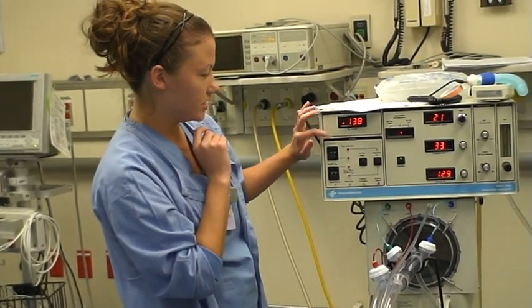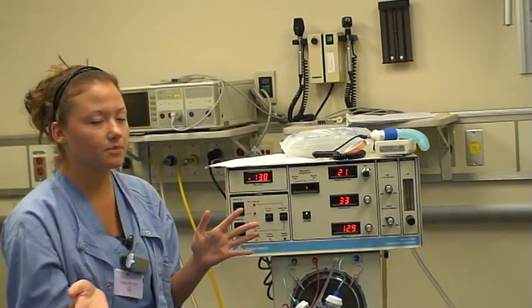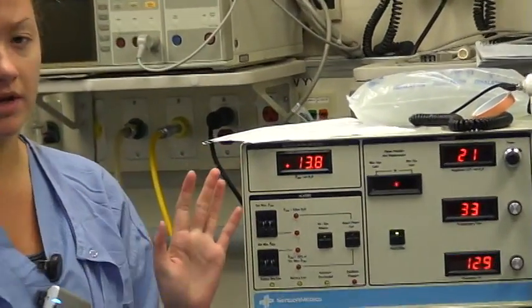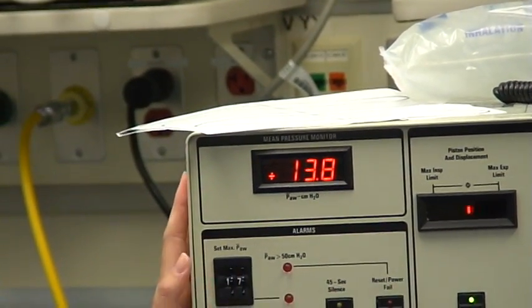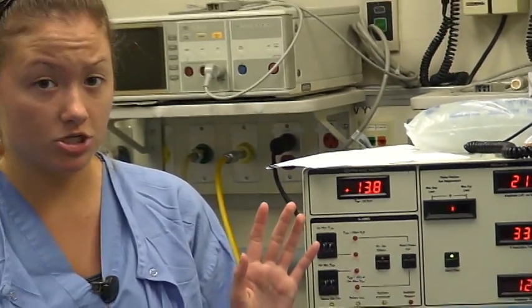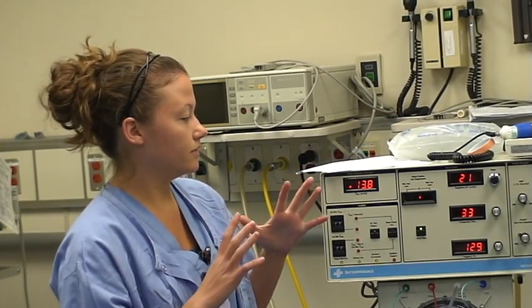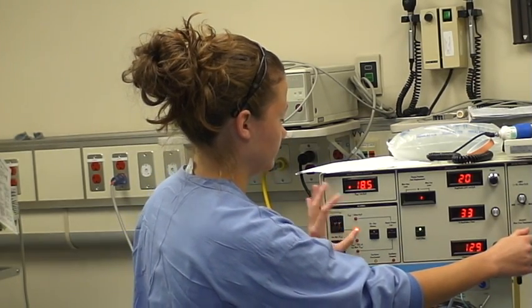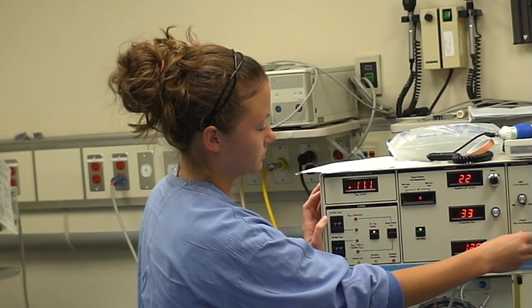The last thing you're going to set is your mean airway pressure. There are a couple of ways to set it. One way is if you're moving your infant from a conventional ventilator to the oscillator — you're going to want to set your mean airway pressure two centimeters of water pressure above what was being measured on the conventional vent. So if they were getting nine, you would set it at around 11.